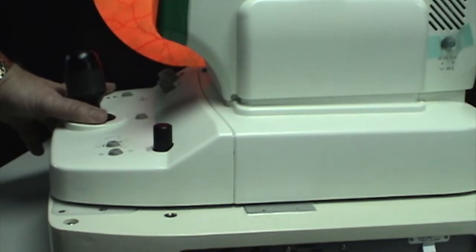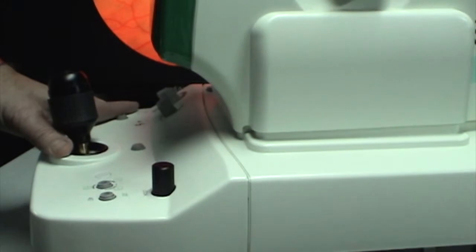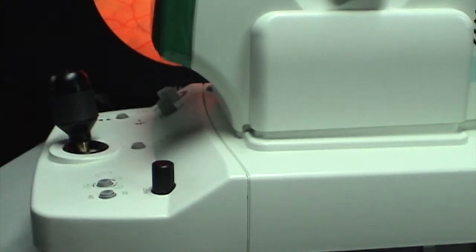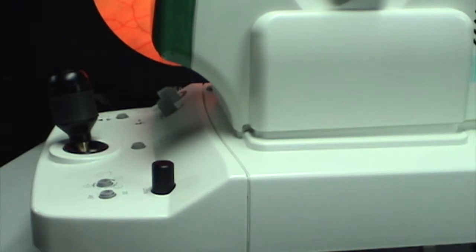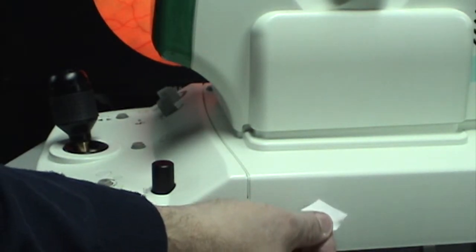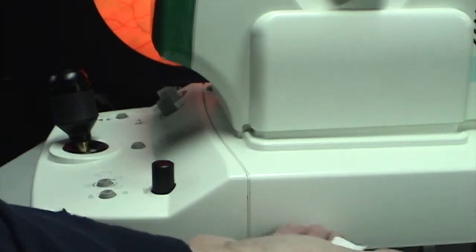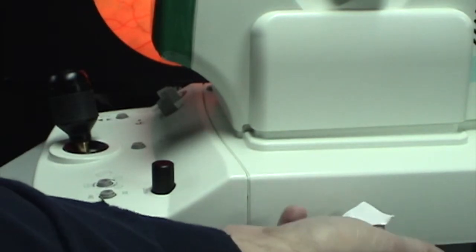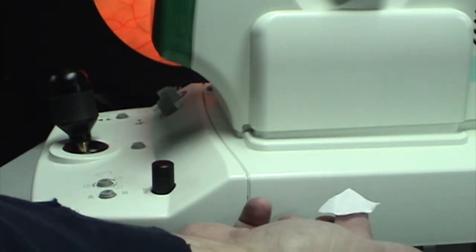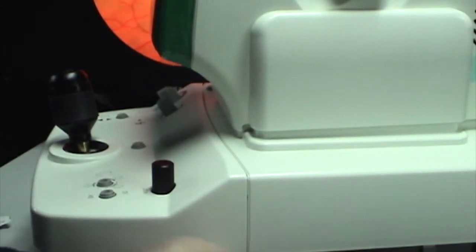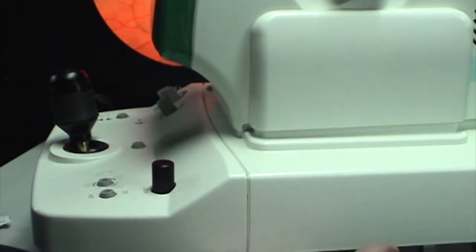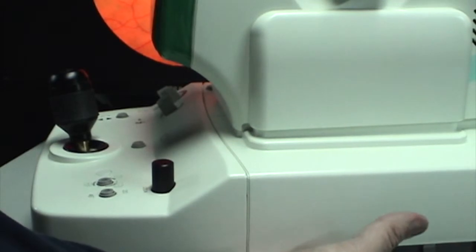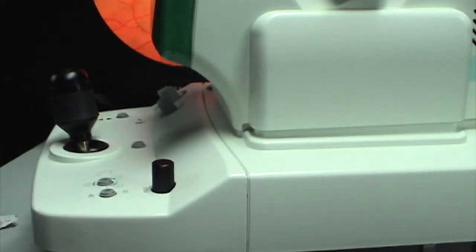So what I'm going to do is push the camera all the way to the right. I'm going to get another alcohol pad, go underneath the camera, put it on the end of my finger, and swipe that sensor with my finger. You feel around, it's right here. I'm going to reach underneath, swipe it, and hopefully that solves my problem.